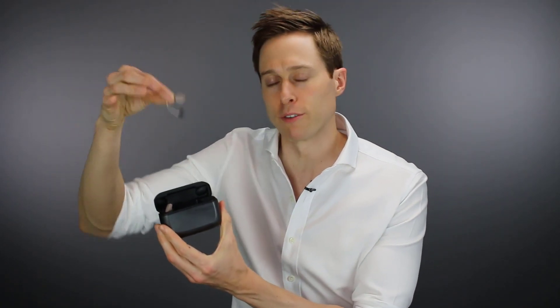The devices charge really quickly — one minute spent in the charger gets you 15 minutes of battery life. The best thing about the charger case is that the hearing aids are very easy to remove. So if you're someone who has finger dexterity issues or doesn't have a lot of strength in your hands, you don't have to pry these hearing aids out of the case. On top of that, when you pull them out they actually turn on, so you don't have to click or hold a button. You pull them out of the case, put them on your ear, and you're ready to go.